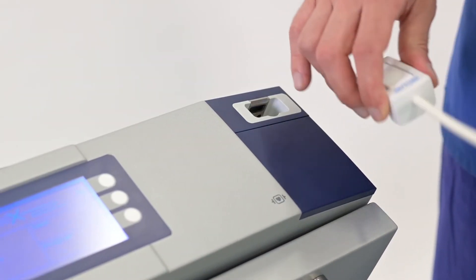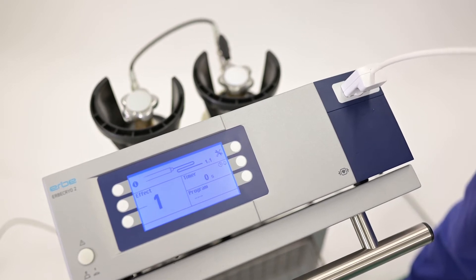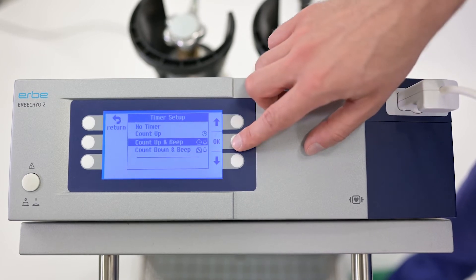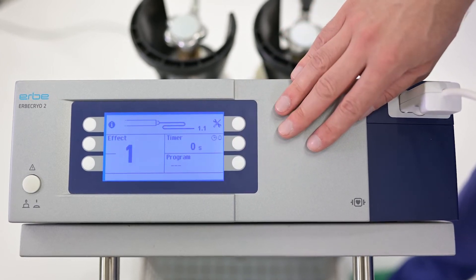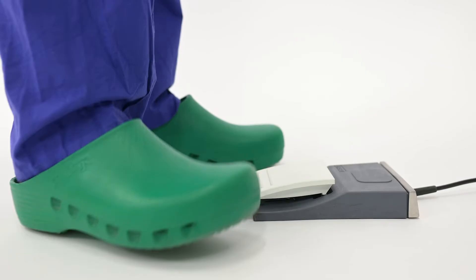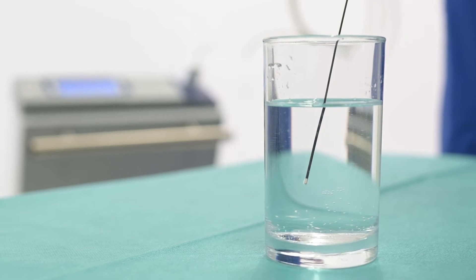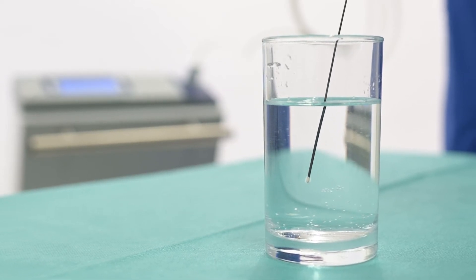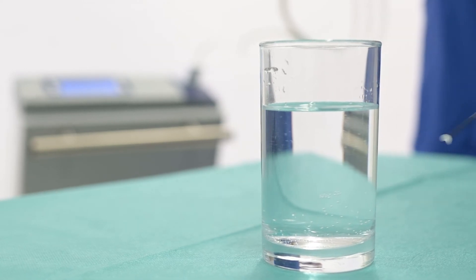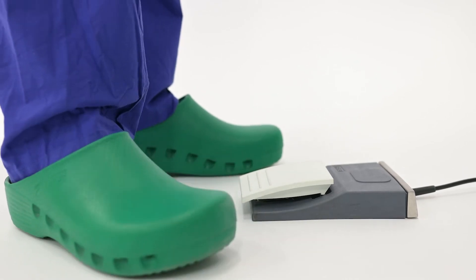The cryoprobe is connected and automatically recognized by the Erbe Cryo 2. For sampling, the count-up and beep function helps the bronchoscopist obtain acoustic feedback for each second of freezing. The activation time is displayed in real time. A freezing test conducted in water before the procedure helps to ensure the probe is not damaged. Make sure that no bubbles form at the tip of the probe upon activation.